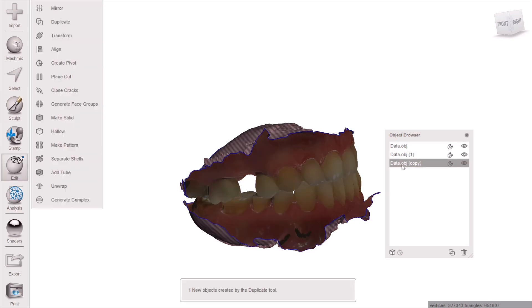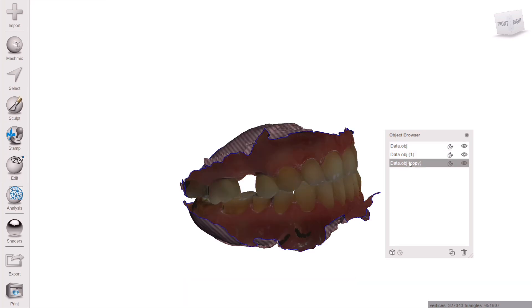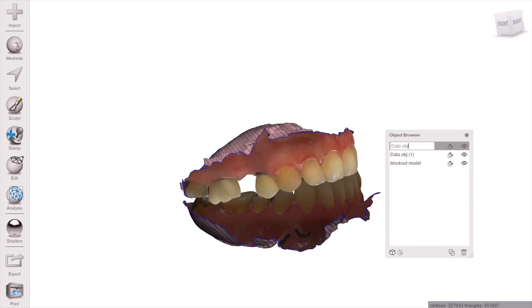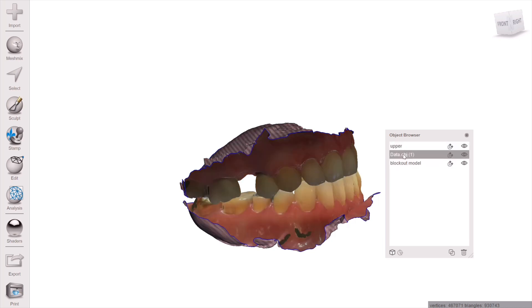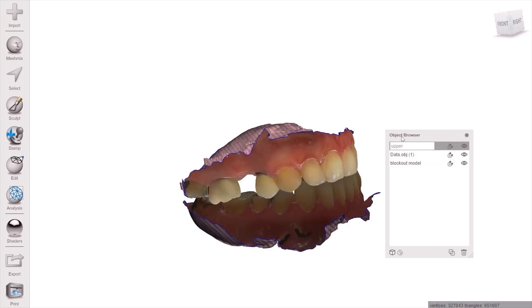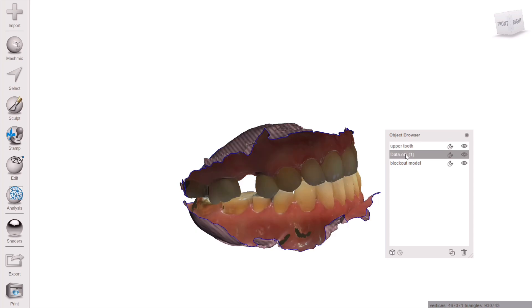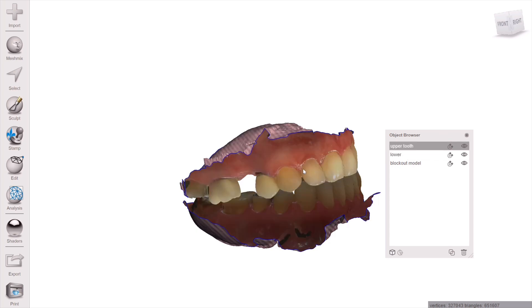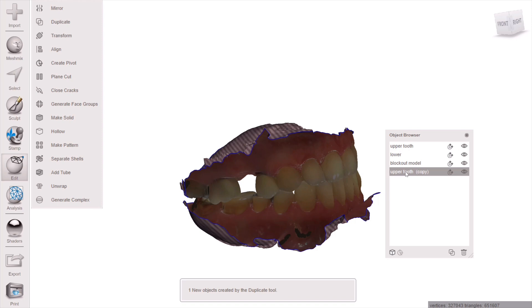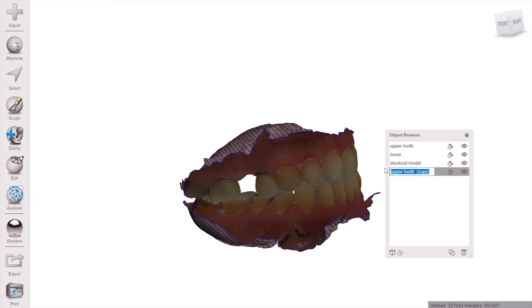Go ahead and click your upper, then go to Edit > Duplicate and do that a few times to create a few duplicates. You're going to rename one of the duplicates and call it 'block out model.' Rename the original and just call it 'upper,' and then do another duplicate and call it 'tooth' or something like that, because we're going to need a few of these upper models to work with.